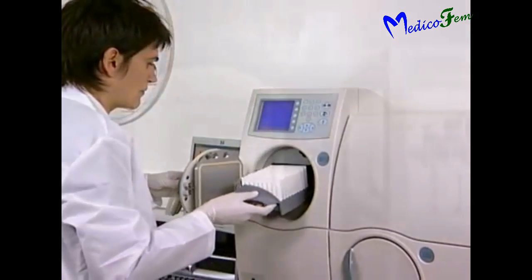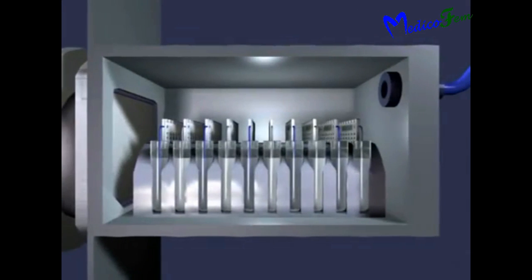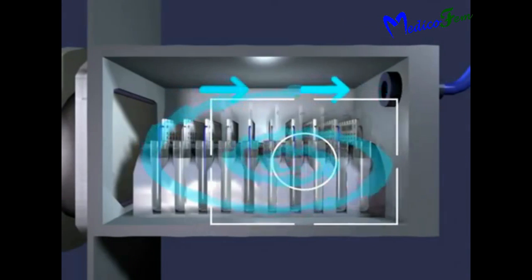Once we press the start filling button, that creates negative pressure inside the filling chamber. That will suck all the air inside the chamber including air from the tube and card.